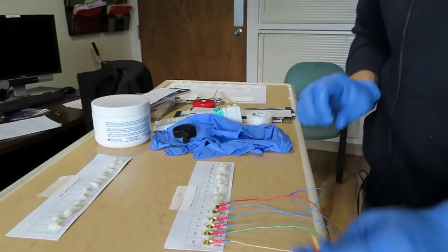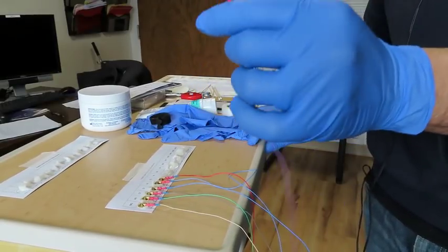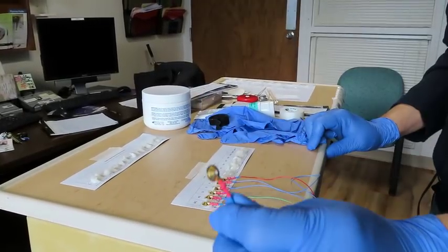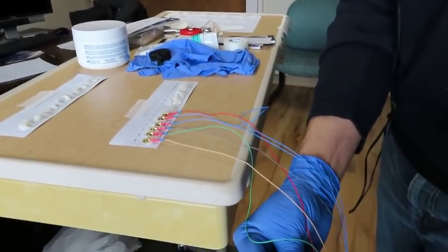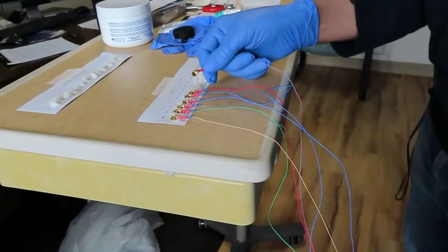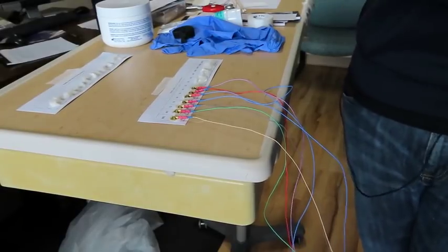And now there's one trick about this whole palette system here that I've kind of figured out is a good thing. So when you do this, you just take it and you're going to put it underneath these wires. Okay, then go here and you're going to press it on here. Okay, and there you go.